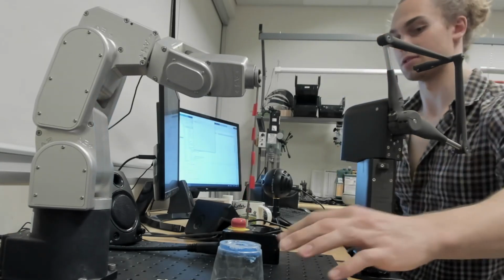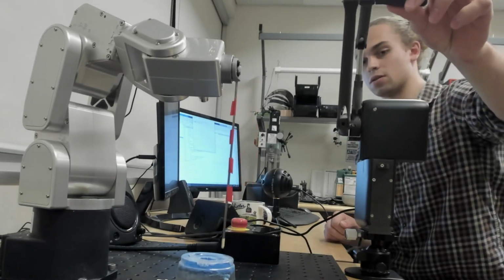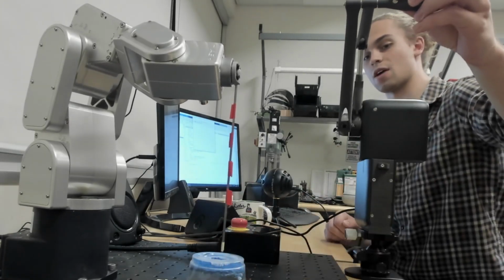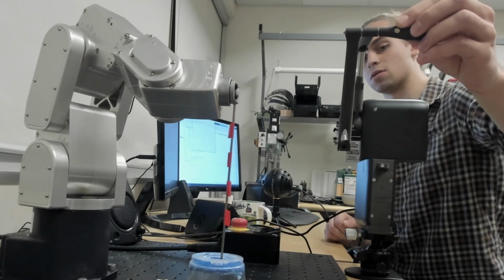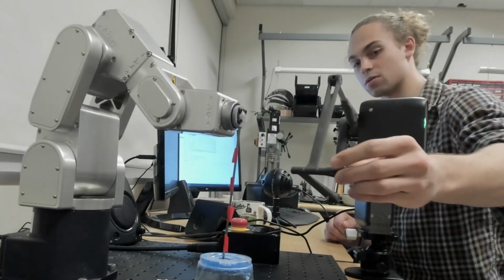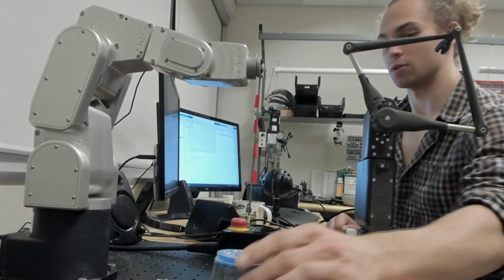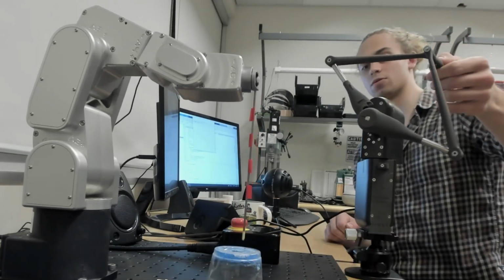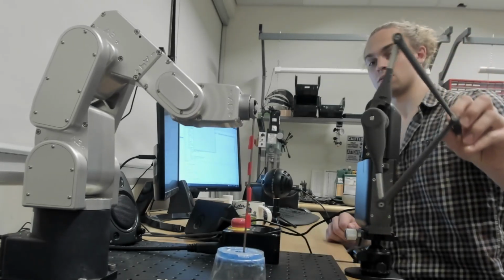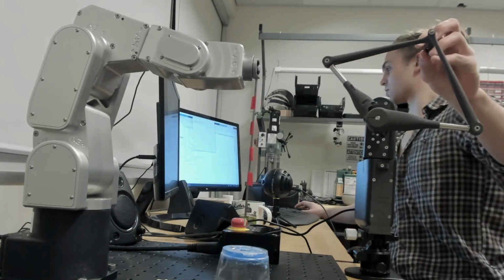And now let's say I want to place another port over there. I can tell the robot, maybe that's a little bit far, eh? Place it right there. I haven't mapped this very well. I've now placed a port here, and I can operate with 6 degrees of freedom underneath that. And you can do that pretty much wherever you'd like. It is pretty prone to singularities. But that's the lab activity. So I'll stop running that.